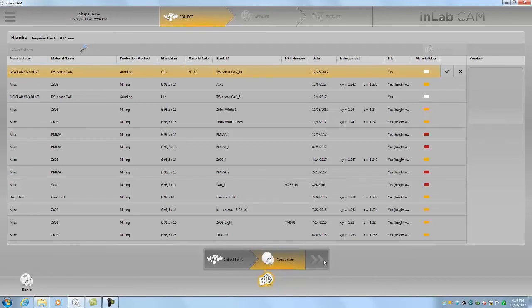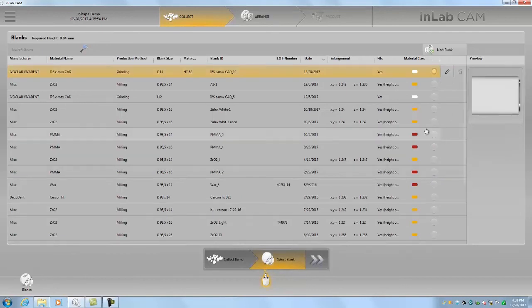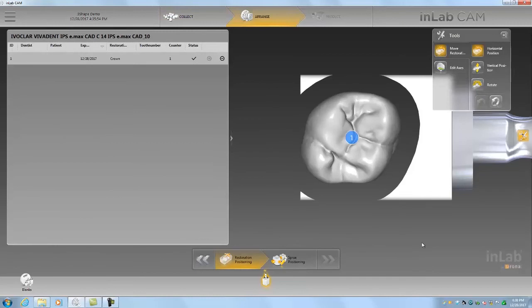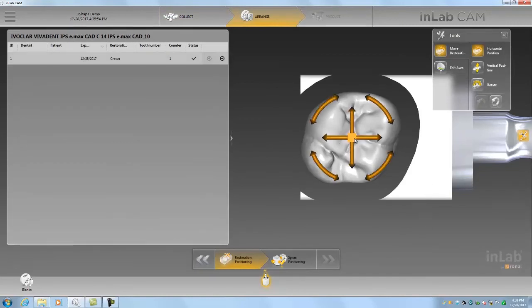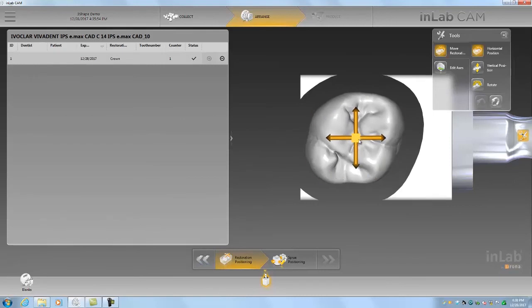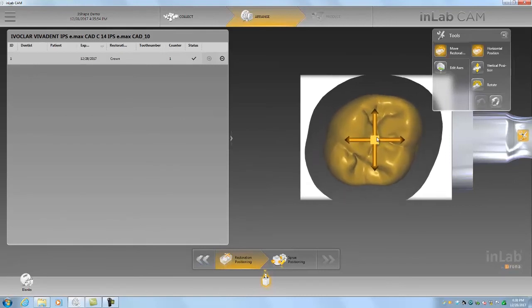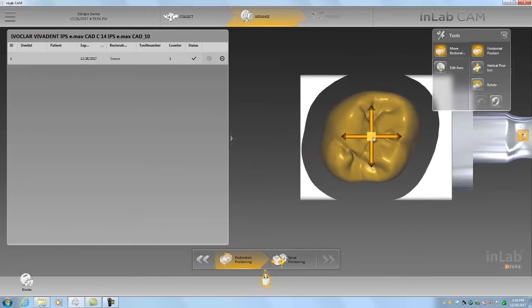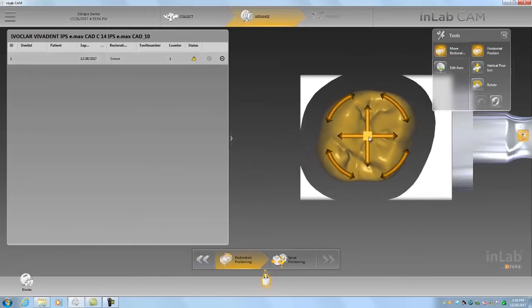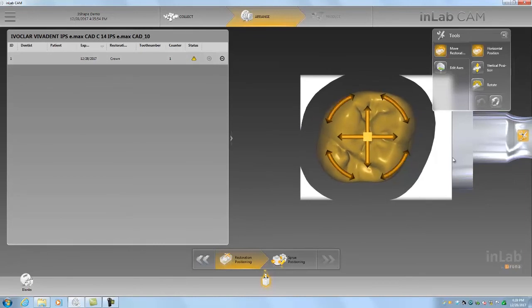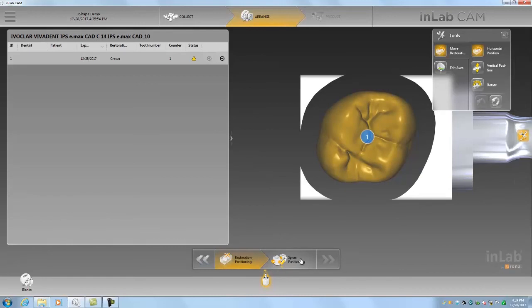Let's click the save button. And now we're ready to move forward. The in-lab CAM takes care of the default placement. You can hover your mouse over the unit and shift the placement wherever you like in the block. We'll just keep it centered here. We'll say that's good and go on to sprue positioning.